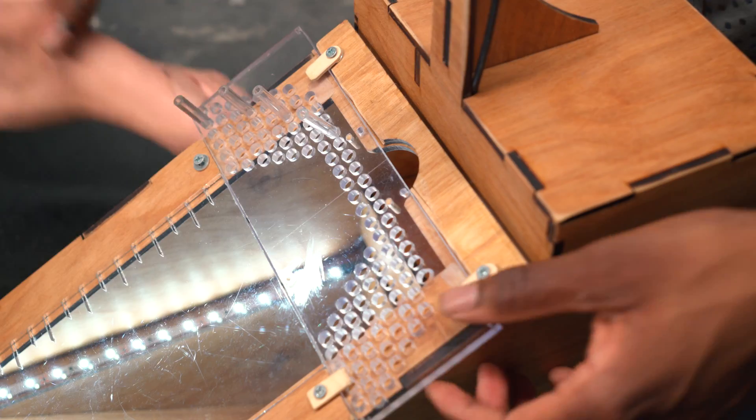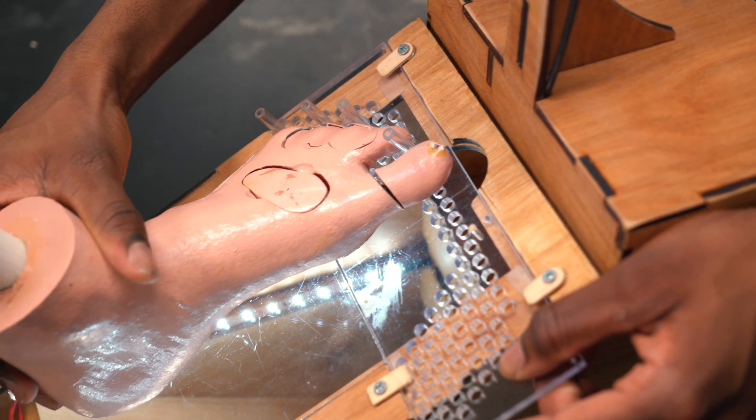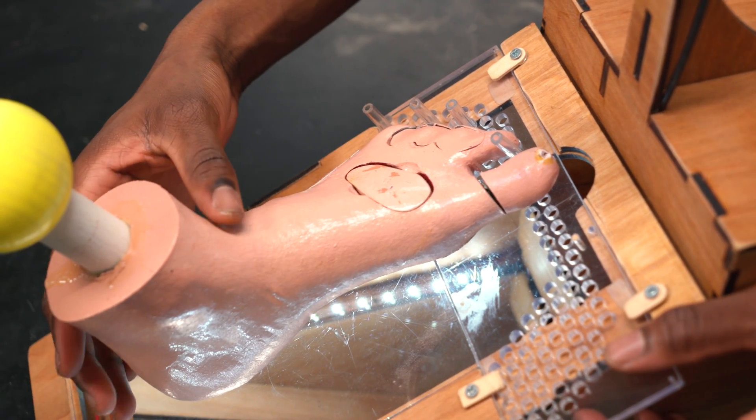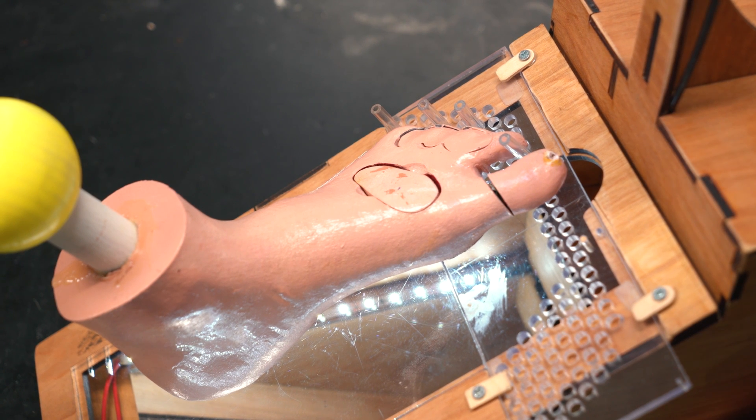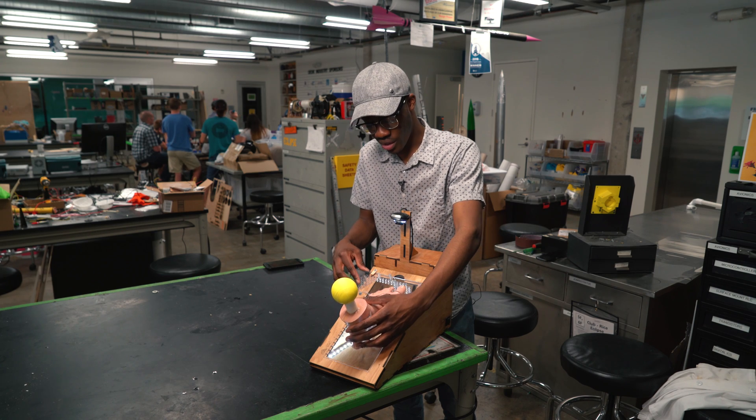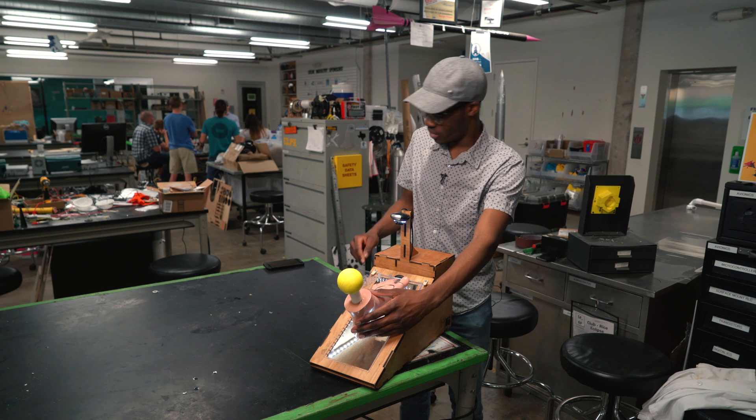The way the foot would go on the pad is like so. We have markers on the side so you can see the relative size of cuts and scratches. You slide the toe separator one way for your left foot and separate all your toes like you see here.